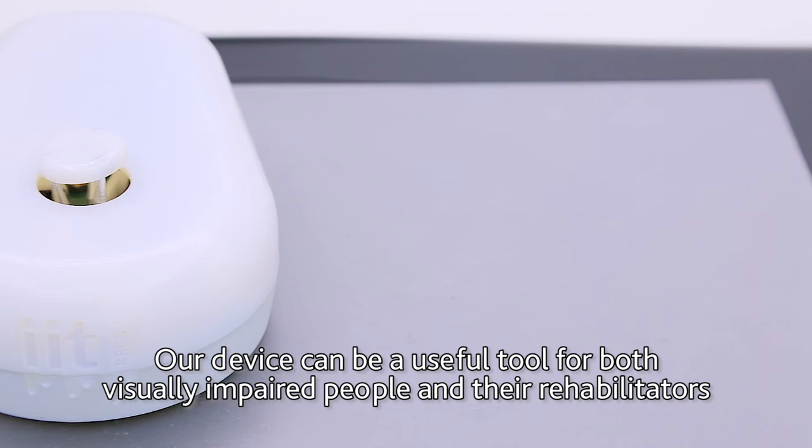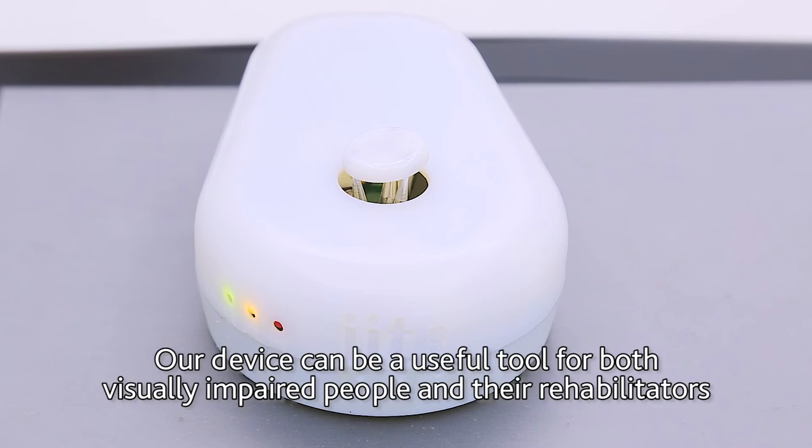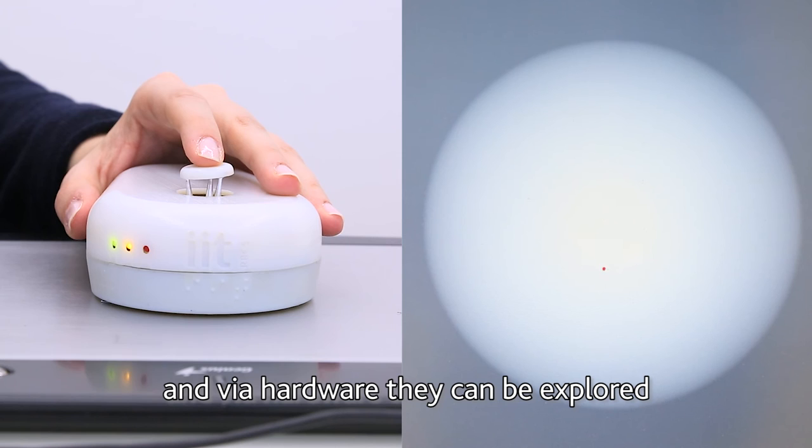Our device can be a useful tool for both visually impaired people and their rehabilitators, since via software a tactile dictionary of objects can be created and via hardware they can be explored.